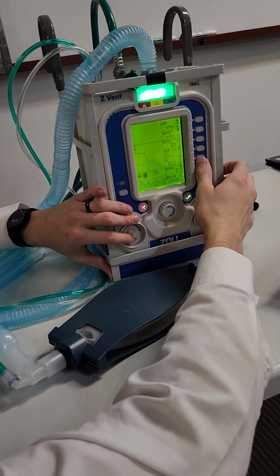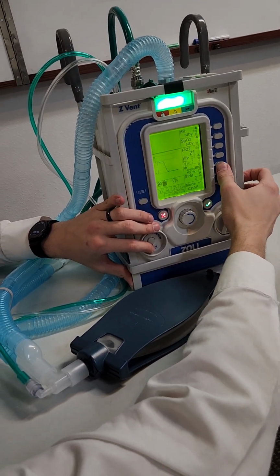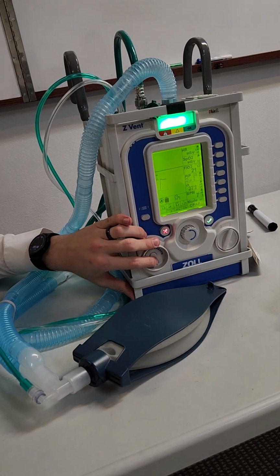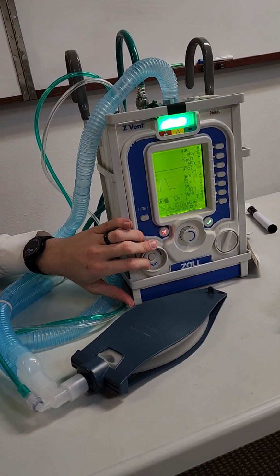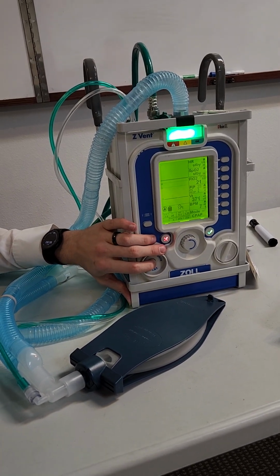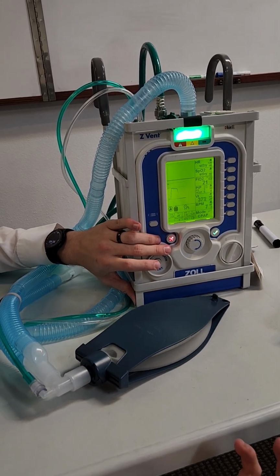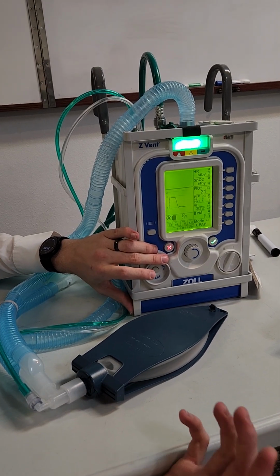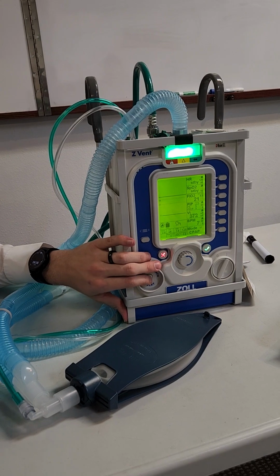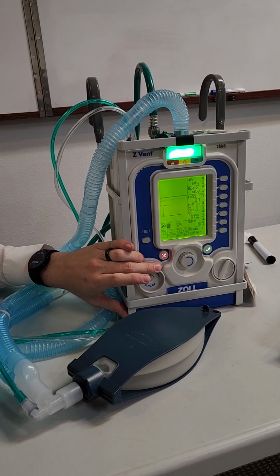Tidal volume here, we can set that to alarm as well, because it's being measured in CPAP, because it's up to the patient to draw in as much air as they feel that they need with each breath, because they're awake and they just have it on their face. So you could set it to be, maybe you want it to alarm if the tidal volume's over 800, or if it's less than 300. You can go ahead and set that.